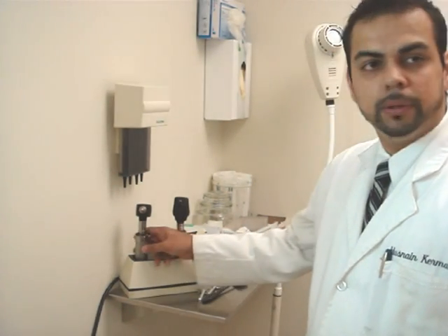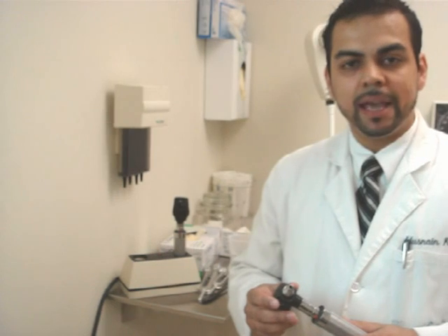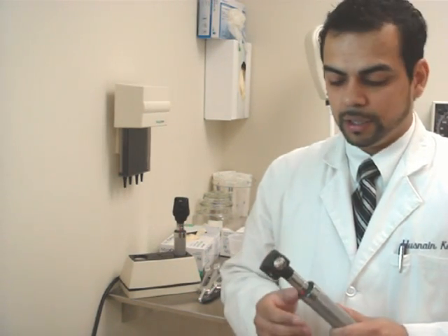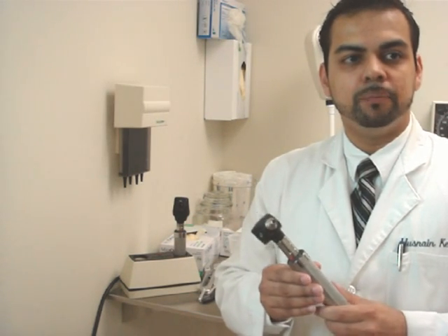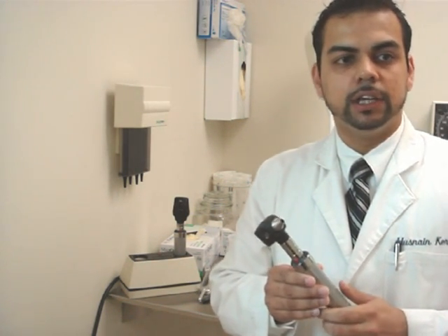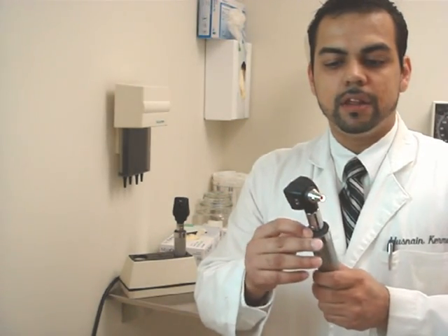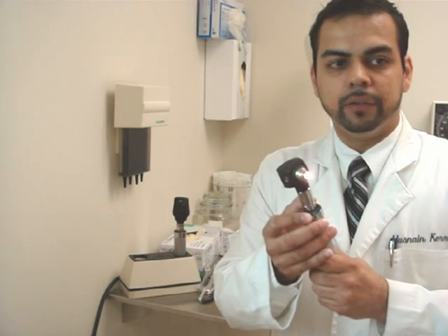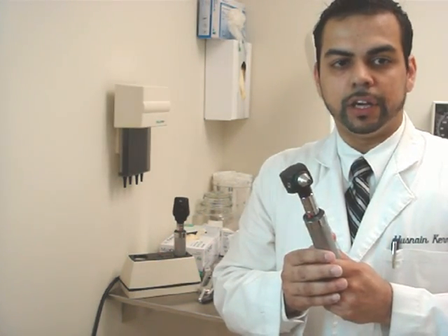Another standard piece of equipment in patient rooms is the otoscope and ophthalmoscope. The otoscope is not simply used to look within the ear — both it and its cousin the ophthalmoscope are magnifying glasses with non-view-obstructing light sources. Most functions are found within the otoscope's head, while the handle typically contains the battery. Turning on a battery-operated device involves depressing a collar lock and rotating an intensity adjustment collar. Once finished, turn the intensity collar down and turn off the device so batteries do not drain, and replace the unit into its charger.